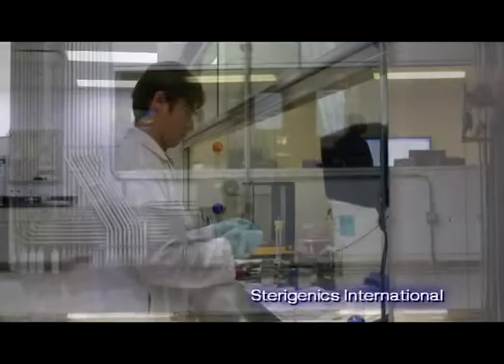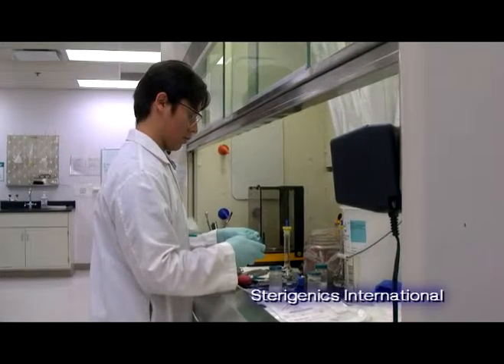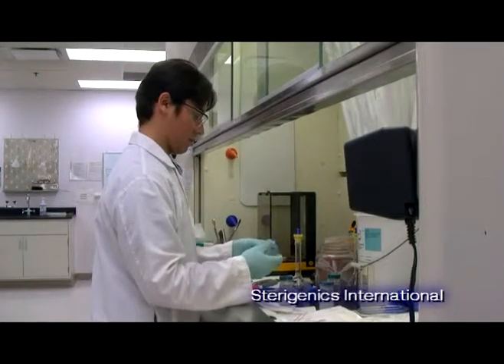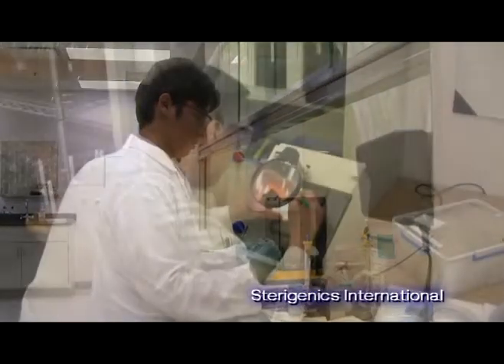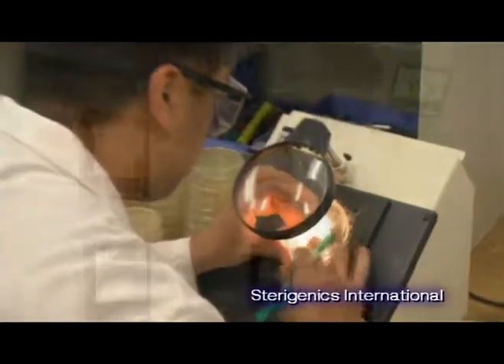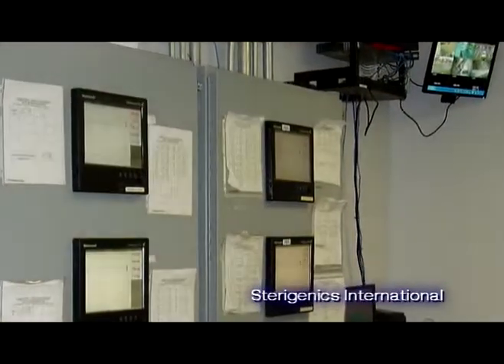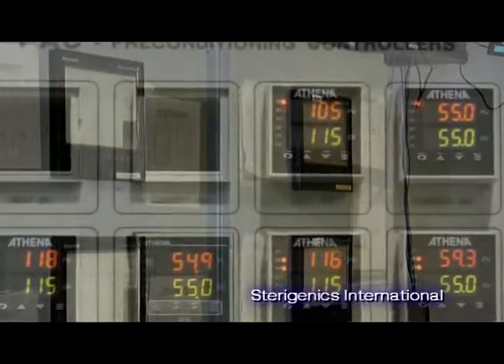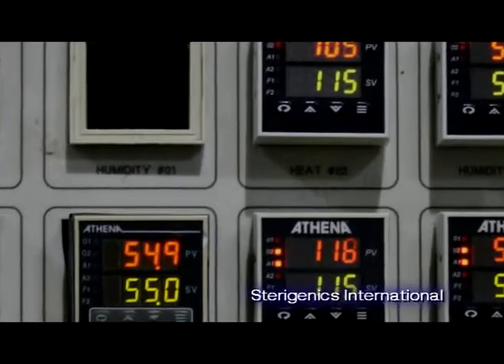Biological indicators that were previously inserted in and around the packages prior to the pre-conditioning phase are used to measure the quality of the sterilization process. While the product undergoes the aeration process, the BIs are removed from the load and sent to our lab for testing. Sterility can also be confirmed by establishing processing specifications for each of the key parameters, then monitoring activity in the chamber to verify each condition has been met.